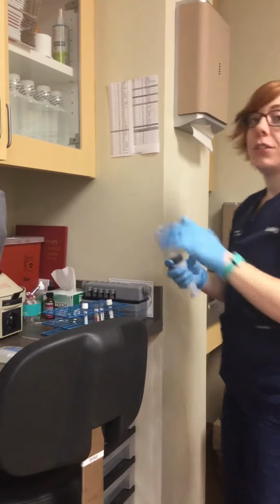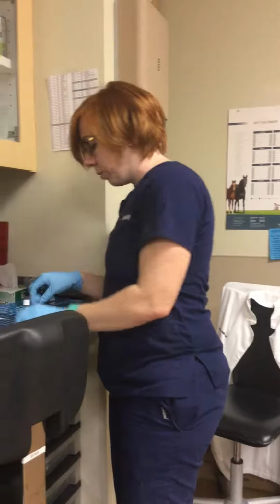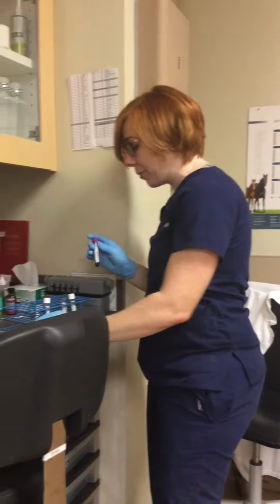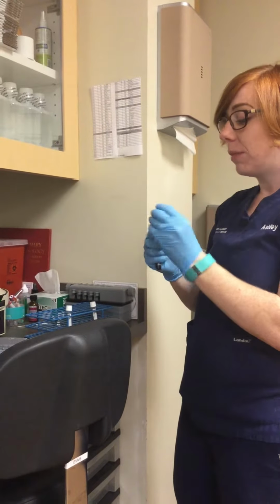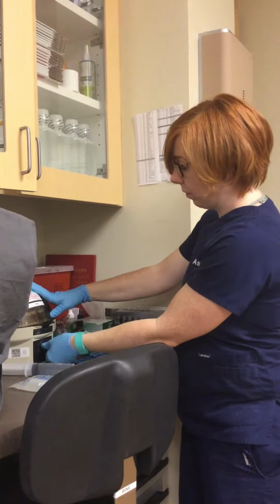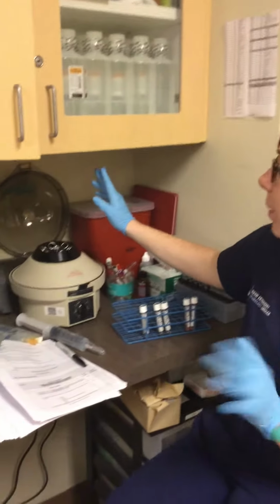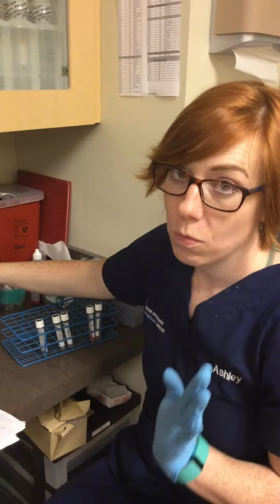and I'm going to centrifuge them, and then I'm going to remove the top part just like I did with the plasma, and I'm going to repeat that 3 times so that the red blood cells have been washed for a total of 3 times. So this is round 1. Okay, so the centrifuge just got done spinning for the 3rd time for the 3rd wash.